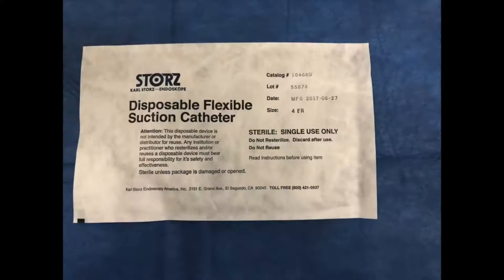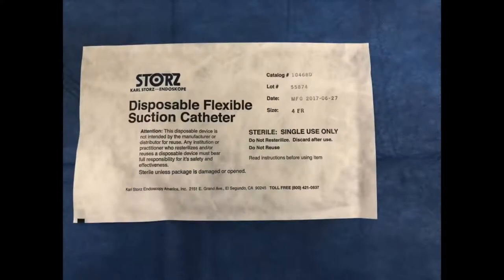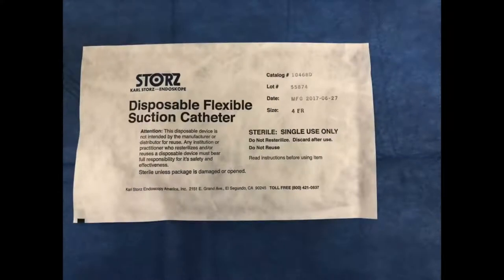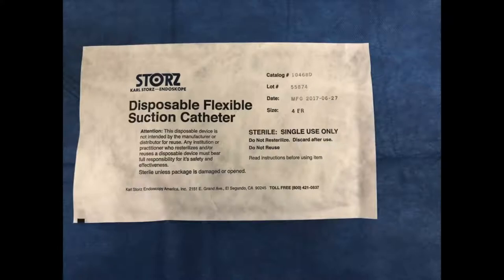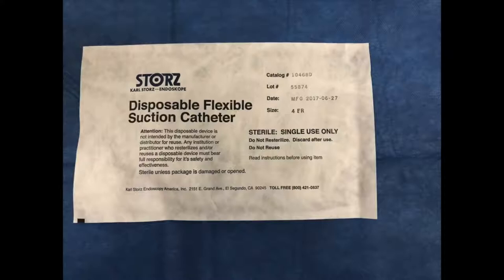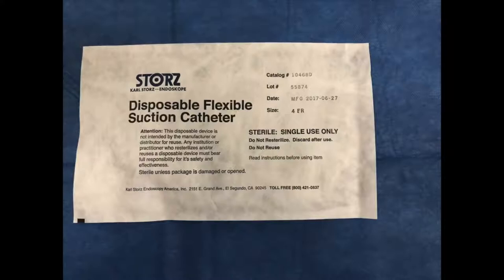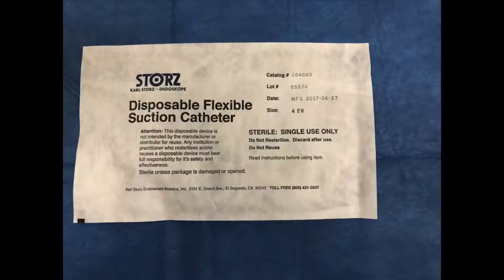It should be noted that a disposable flexible suction catheter, either a 4 French or 6 French in size, should be available for the patient in case suctioning of the trachea or bronchi is necessary during bronchoscopy.